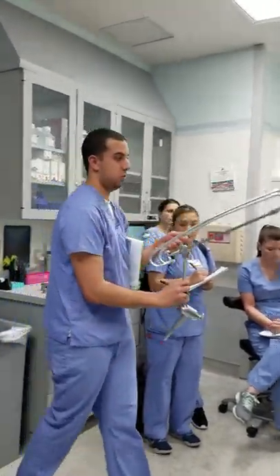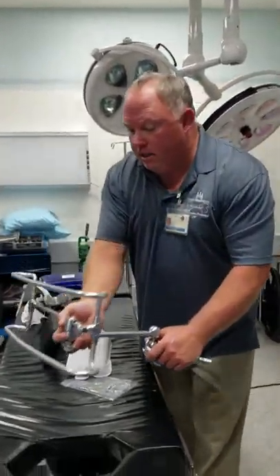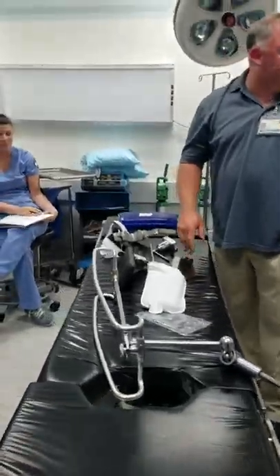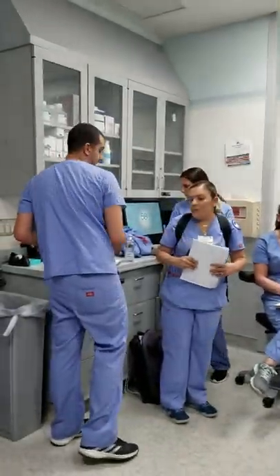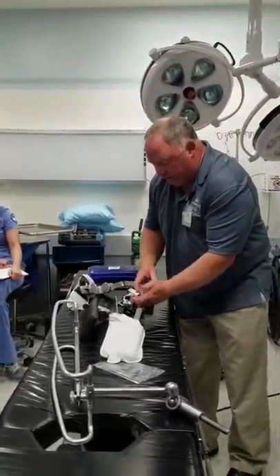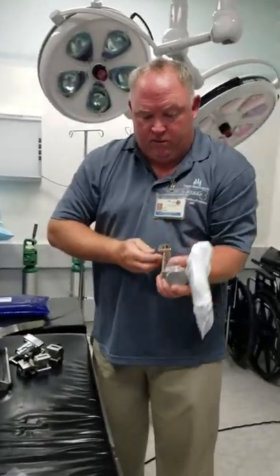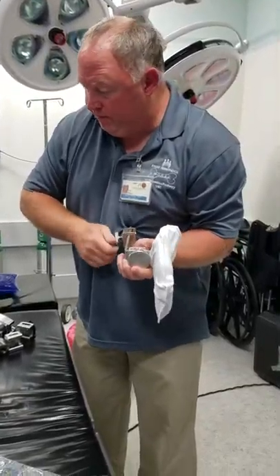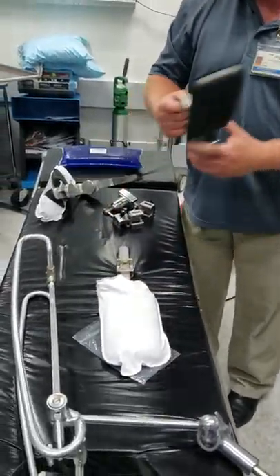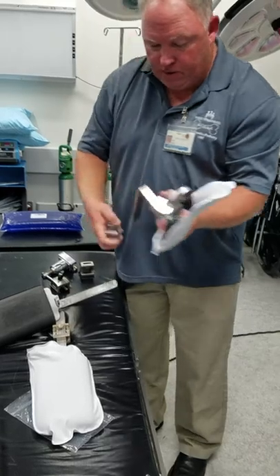We're also going to need what we call an airplane splint — that's what this is here, it's called an airplane splint. With this we need something to attach it to the bed — clamps. I'll go ahead and put the clamps on now so I have everything ready to go. Unfortunately you have to put them on the bed after the patient gets on because of weight.